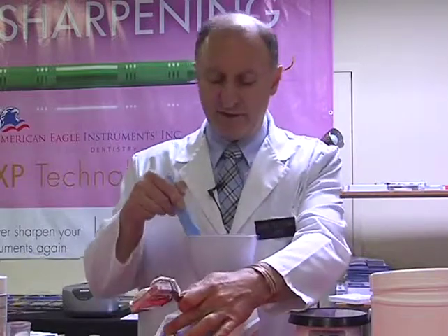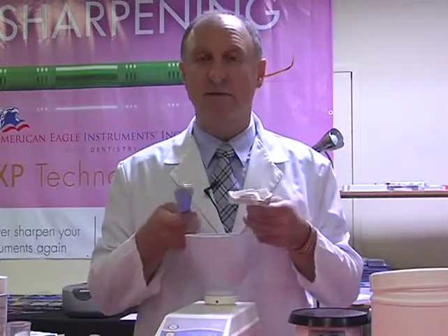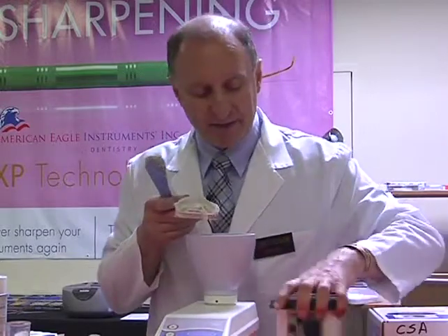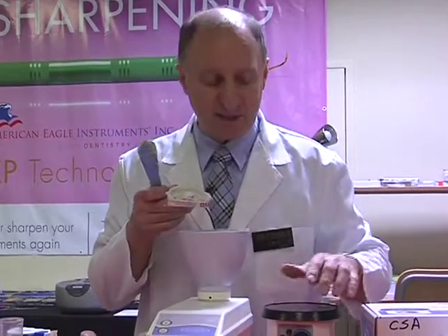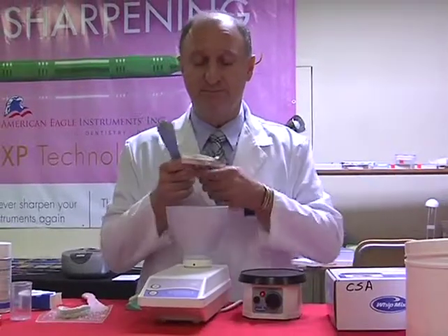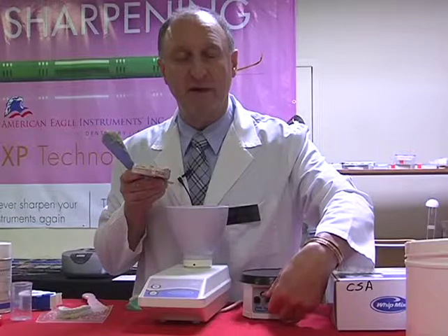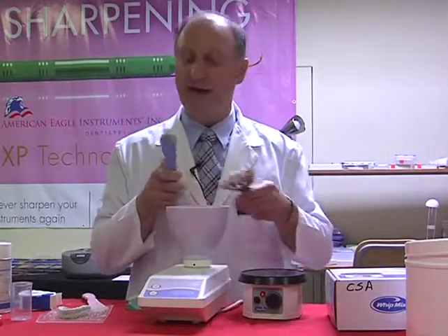So what I'm going to do first off is take a small amount of our stone and start using the dental vibrator. The dental vibrator, in this case I'm using the Whip Mix general purpose vibrator. It's just around $100. It's very well priced. As I turn on the unit, it has a variable speed over here from low to high. I put it on a medium setting, not high.